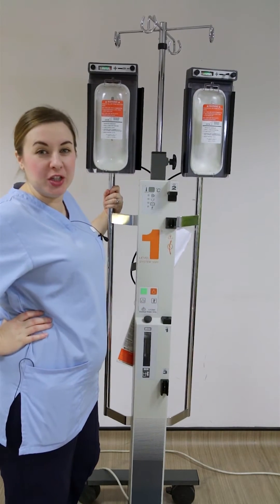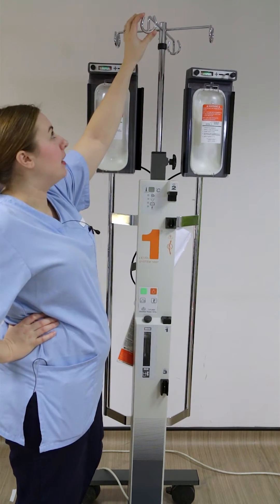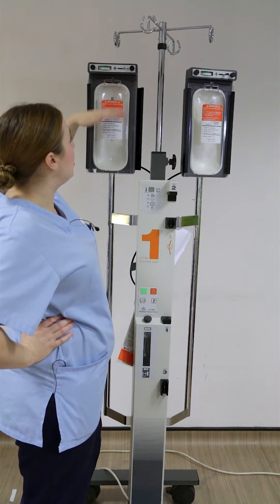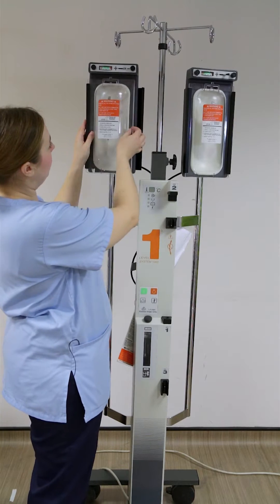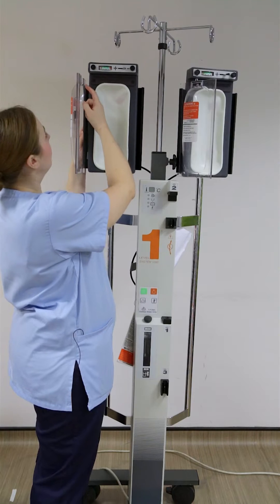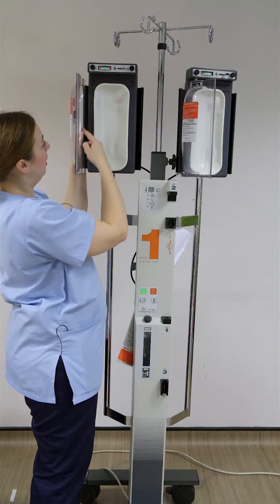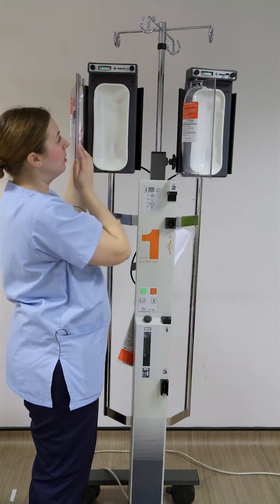So let's have a look at the machine. At the top it's got just standard drip hooks — I tend to put my next bags of fluid that I'm ready to use on them so that I know they're close by. Then as you move down you've got two pressure chambers; they just open up from the side. They have got their own hooks for your fluid bags, so a thousand mil of saline would hook on the top one, and a 250 bag of blood would be on the second one.